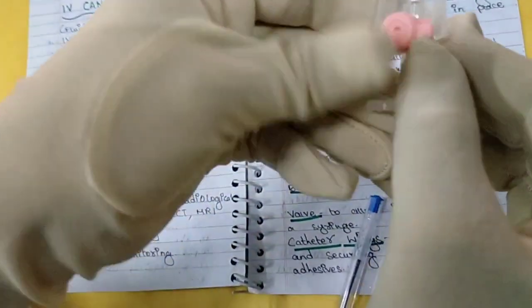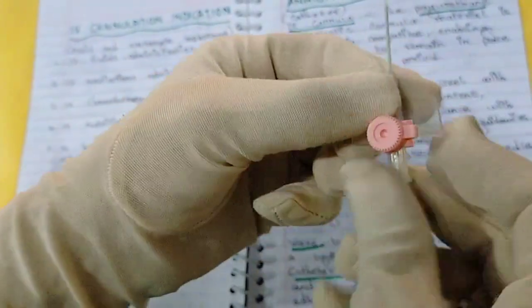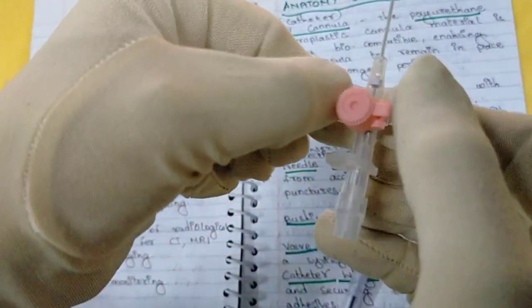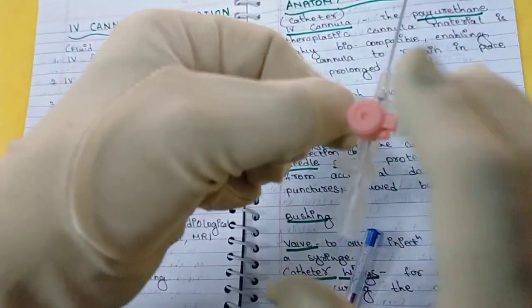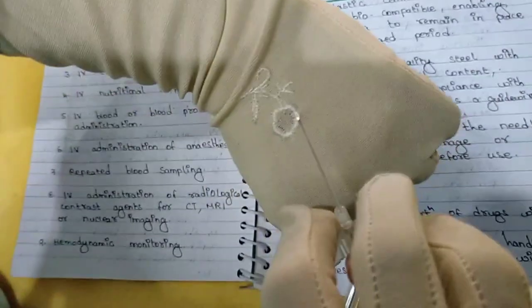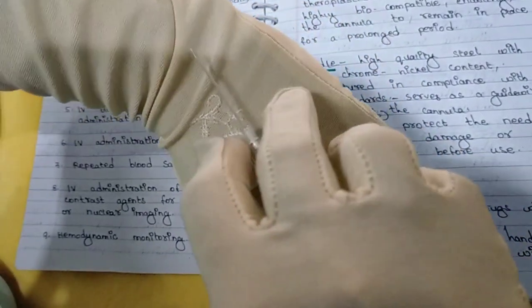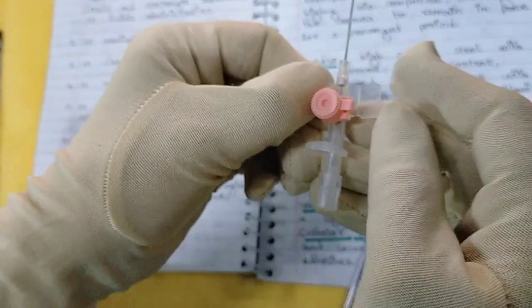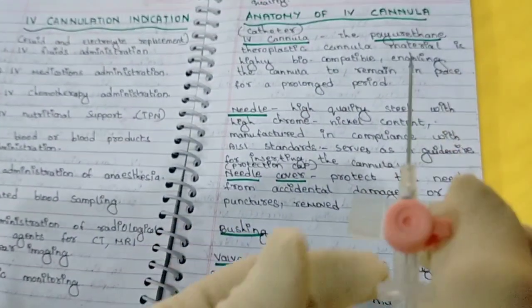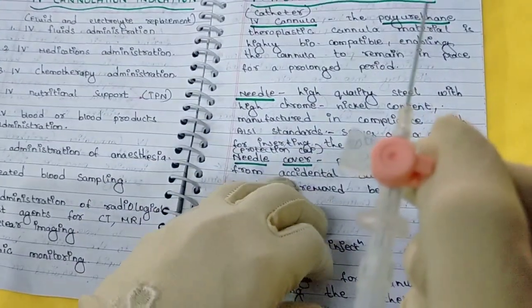Then next you have the catheter wings. These are the wings — when the catheter is still packed they will be folded in, but when we are putting the cannula we have to open and straighten them up. These wings allow you to handle the catheter while inserting — you can hold it by the wings. They also allow you to secure the catheter after fixing it with adhesive. So the catheter wings serve two purposes: manual handling and securing the catheter after insertion.